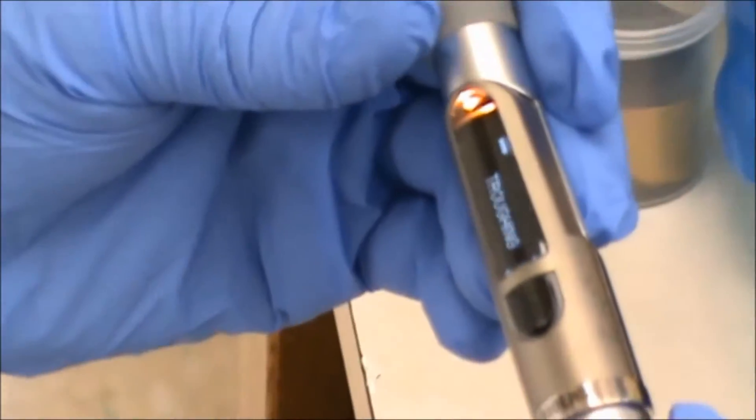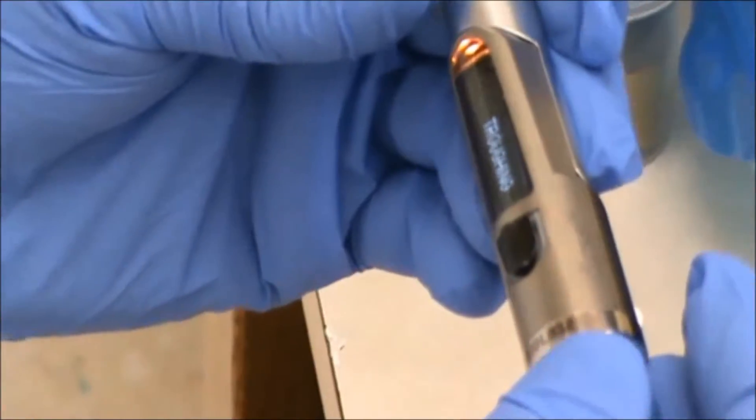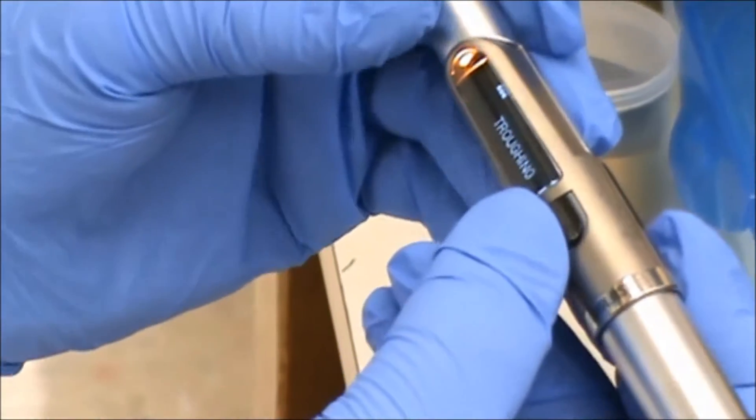Press the button inwards three times, that's the safety device, and then we're going to select our procedure.